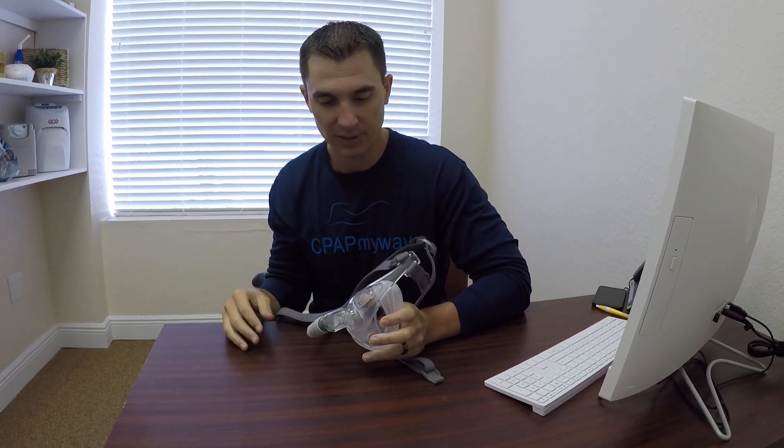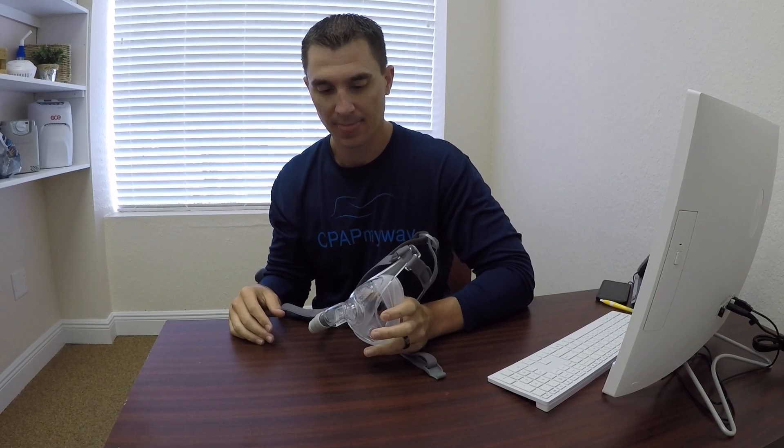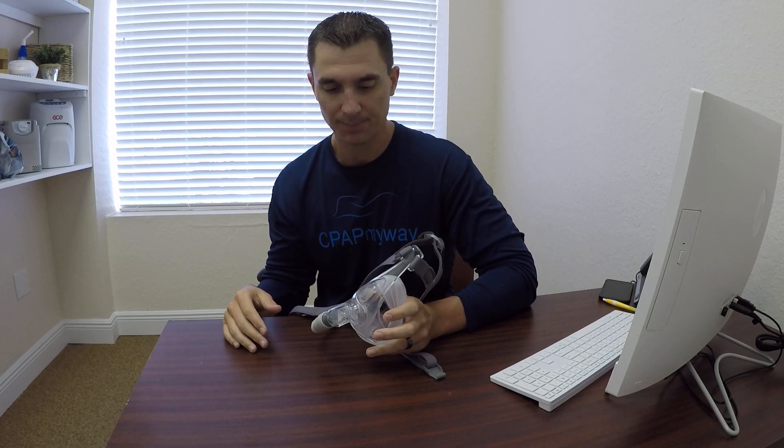On the front here you'll notice the exhalation ports, which I kind of showed by rubbing my fingers across them, so there is expected to be air coming out around the bridge of your nose there through the exhalation ports. Additionally, you'll notice there's a quick connect that can stay actually in the tube.